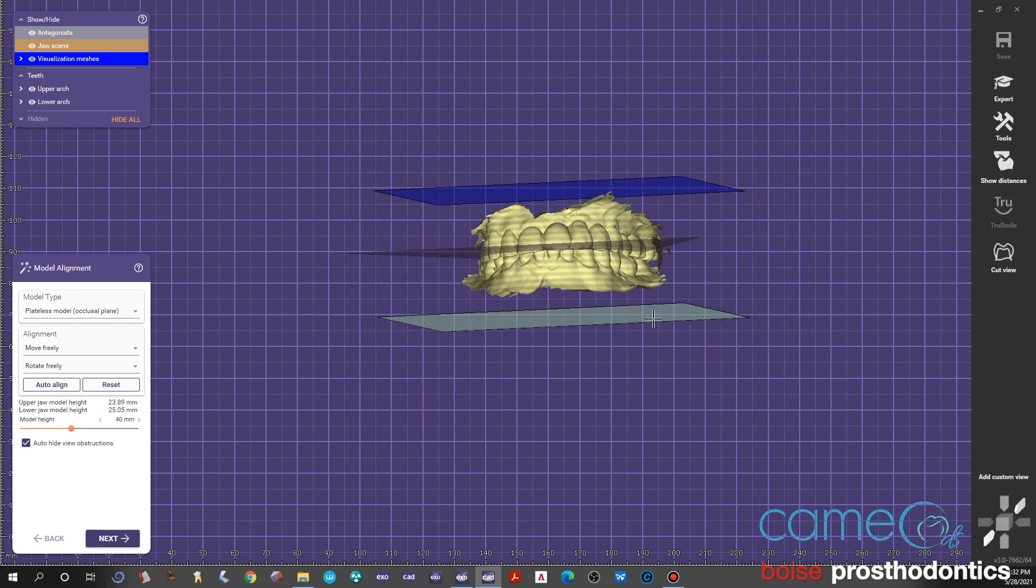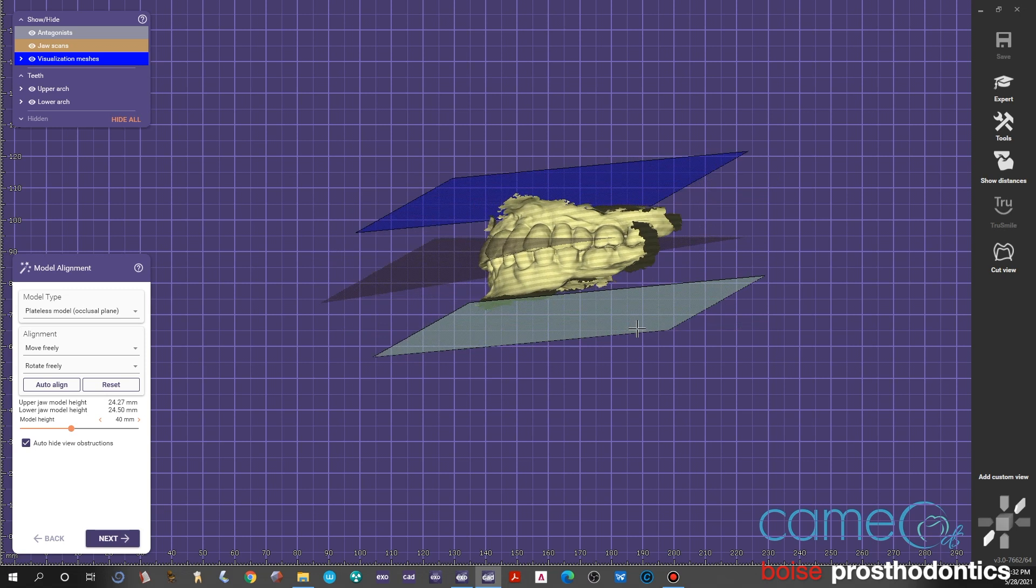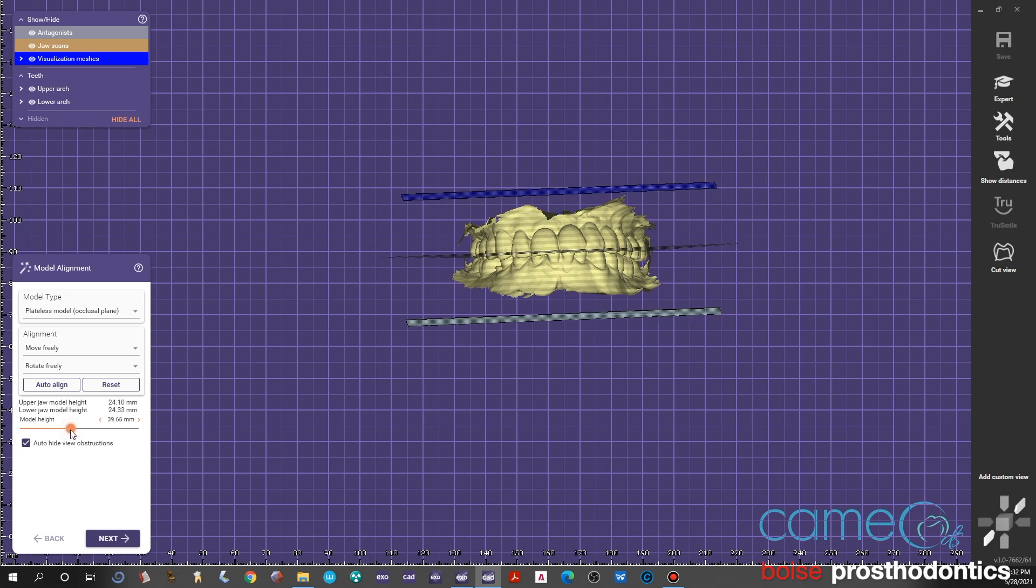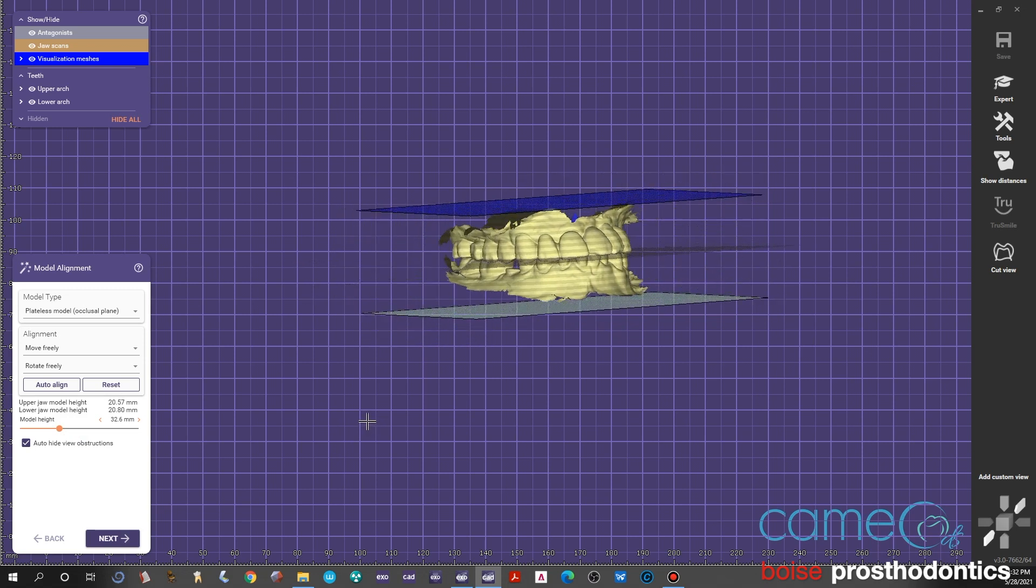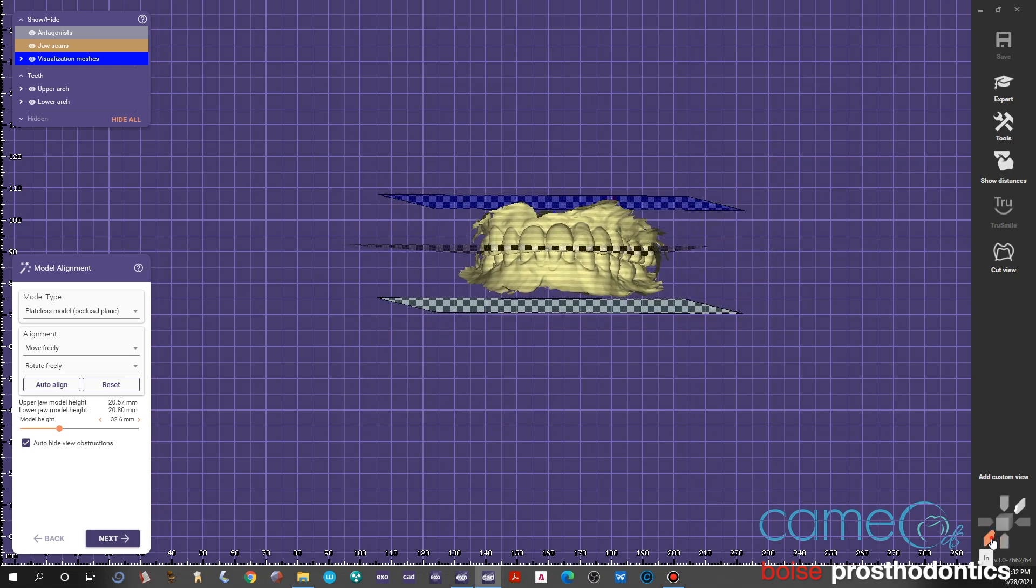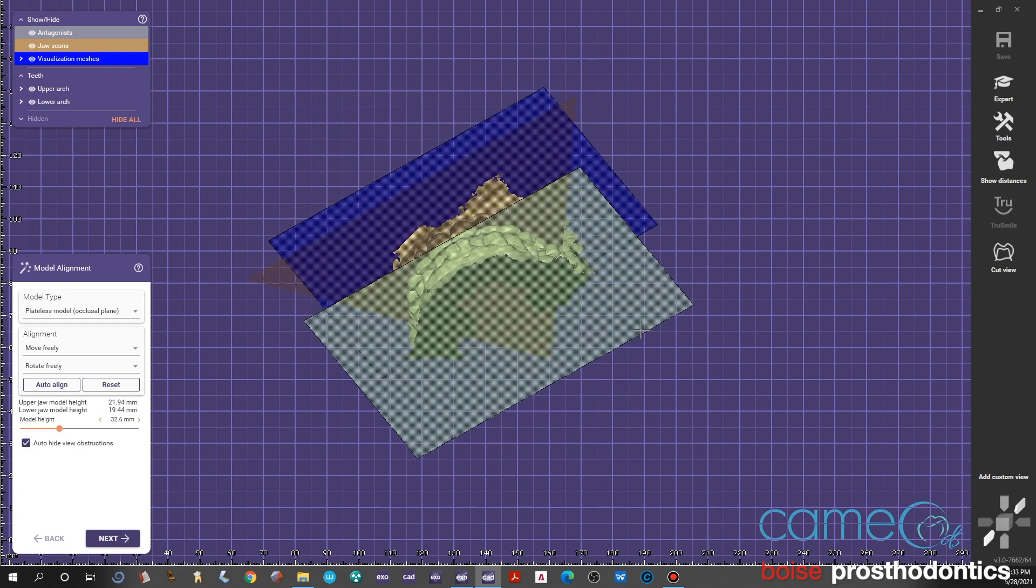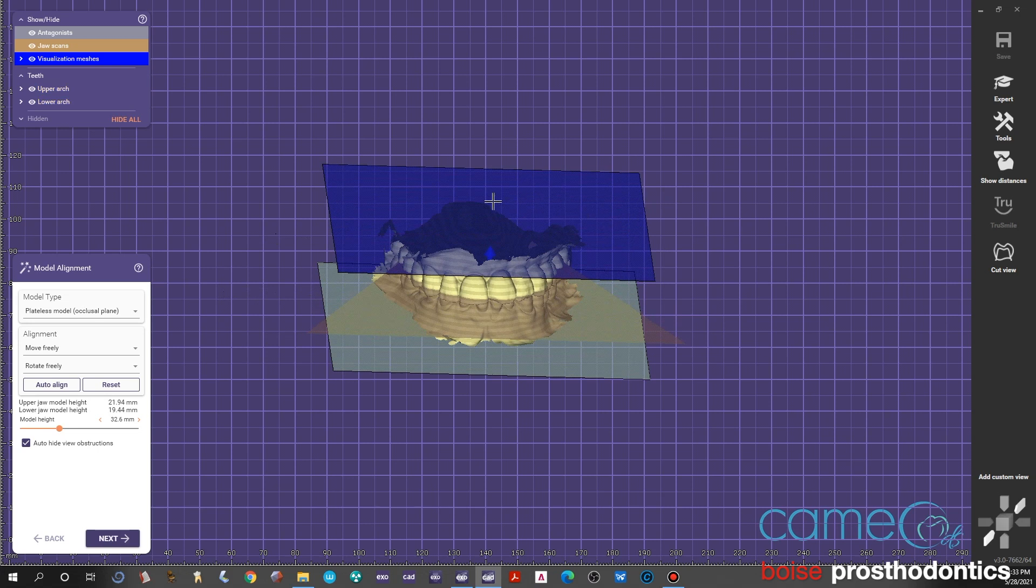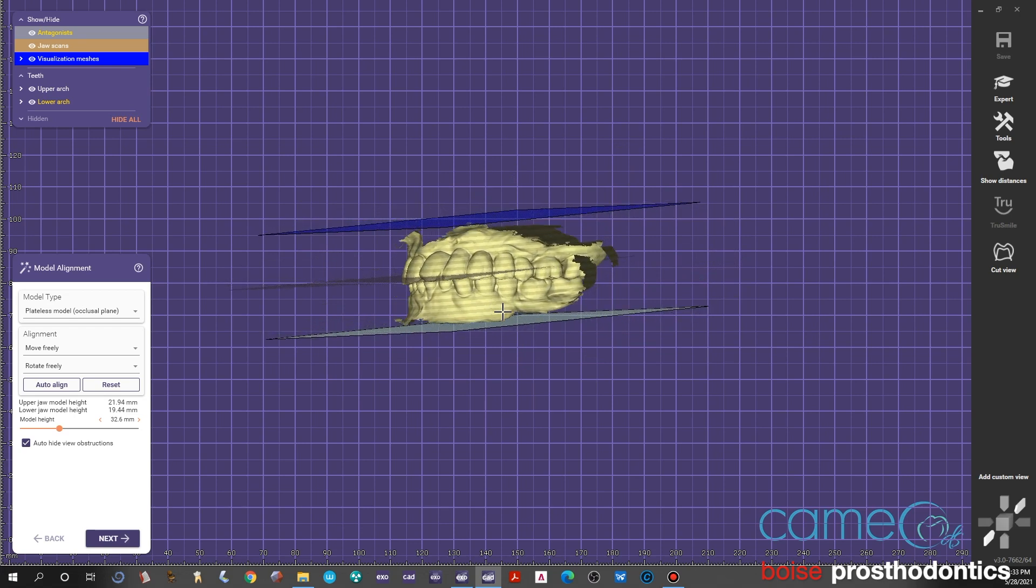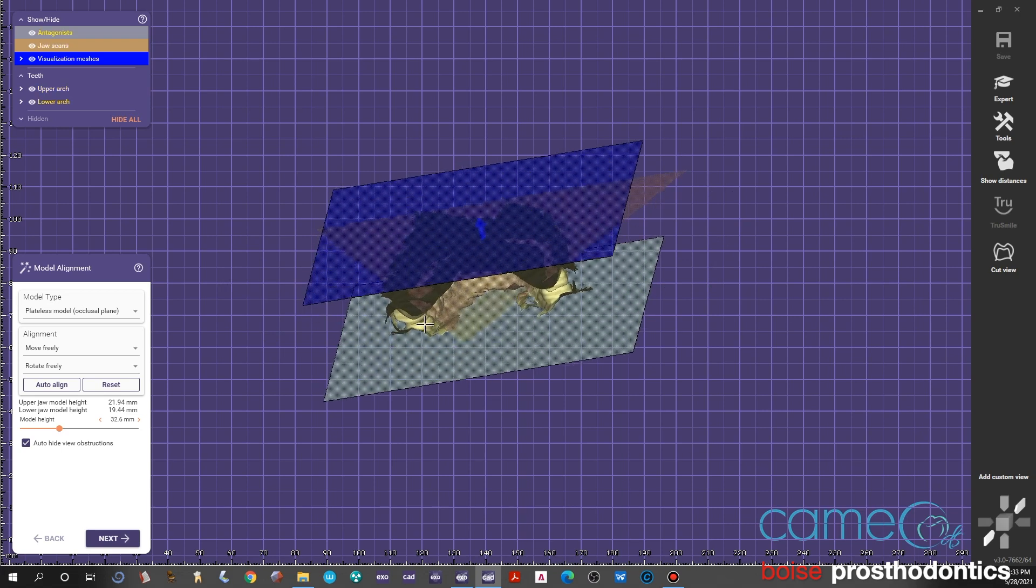Ultimately we've got it centered in there. Once you feel like you have it centered pretty well, then you can expand or contract the height of the models by clicking on that little model height left and right or with the scroll bar. You can shrink it down or up just depending on what your purpose is for the models. Just to save resin, in this case we shrunk it down. We still included all the palate of the maxilla and we'll have all the data we gathered in the mandible. The little arrows in the bottom right corner there just have set locations to which you can view your models from—the anterior, posterior side, and intaglio surfaces.